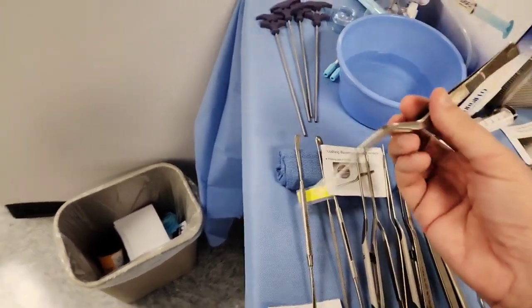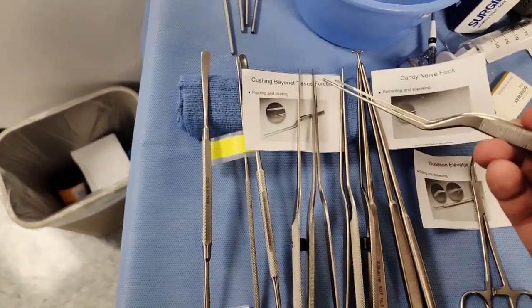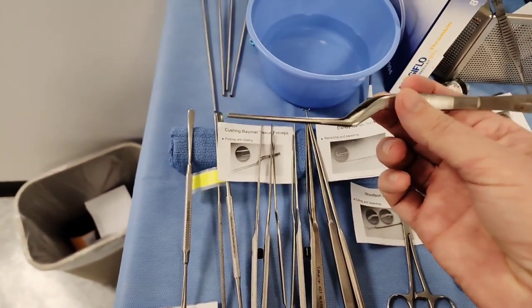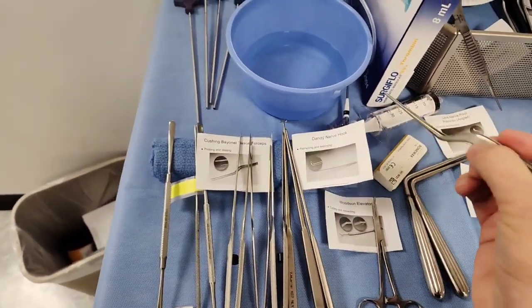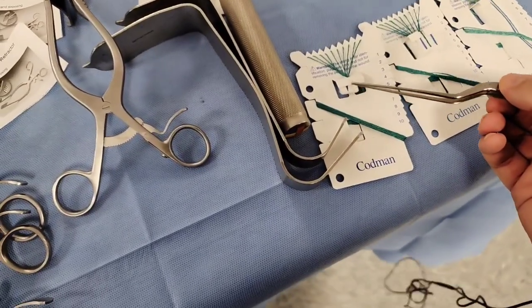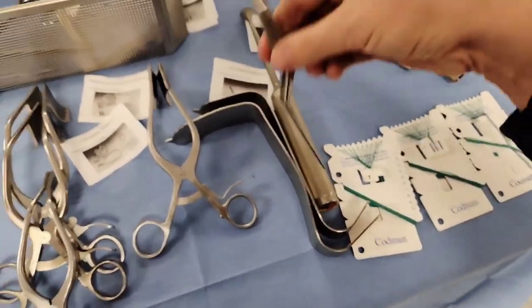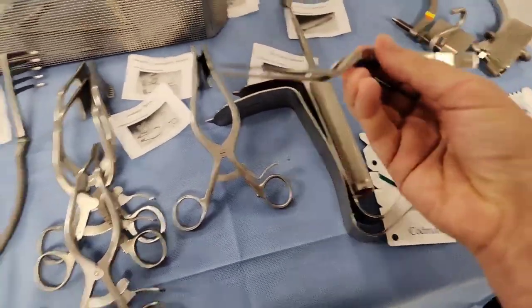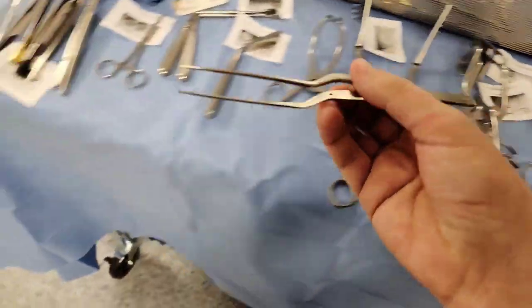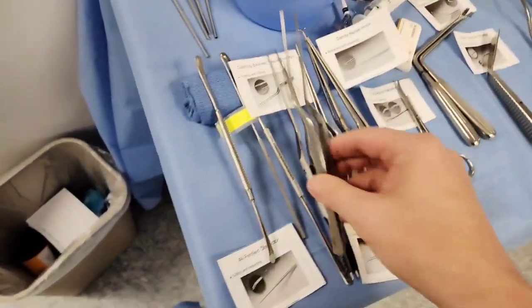Looking at a couple of forceps — this is what they call a bayonet, or a Cushings bayonet forcep. This is pretty much what the doctor uses a lot of times for passing cottonoids. You pass the cottonoid to the doctor using this Cushings bayonet forcep in a lot of these neuro cases.